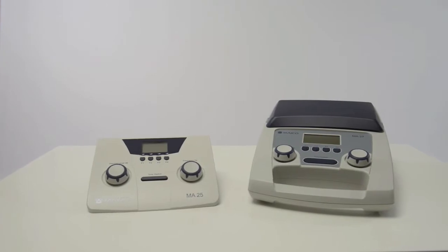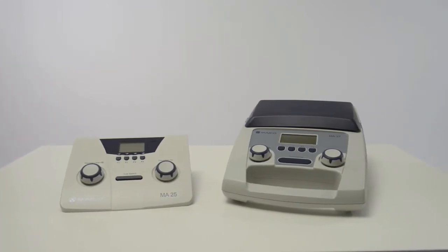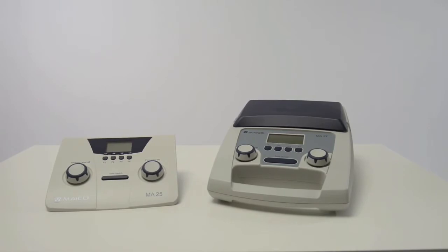This demo is to show you how to set up and use the Maico MA25 and MA27. The operation is the same on both units.